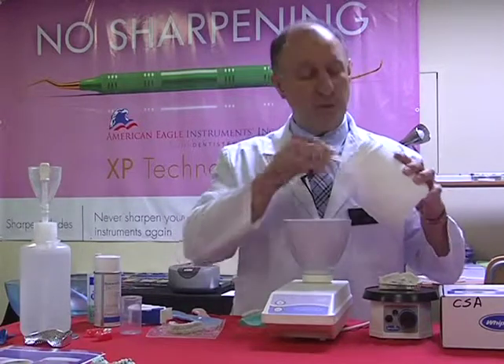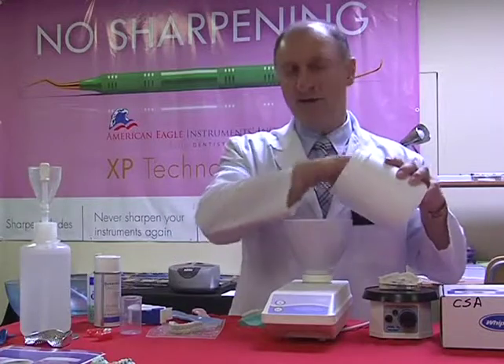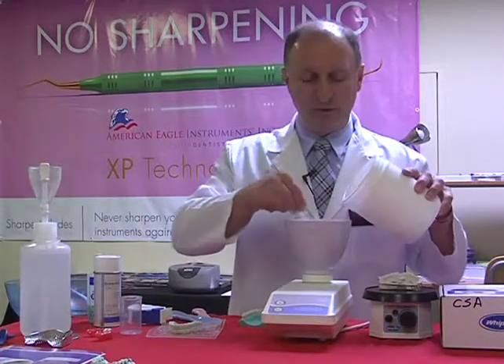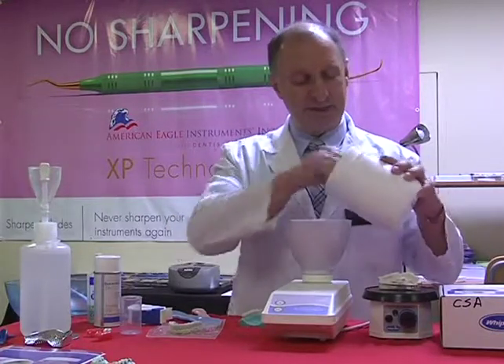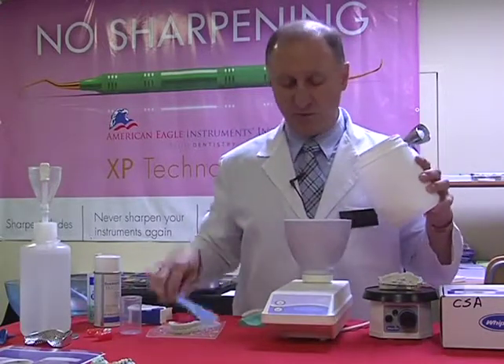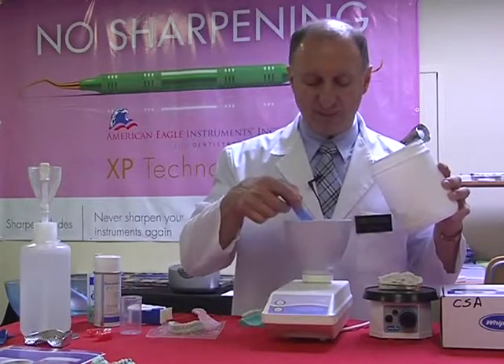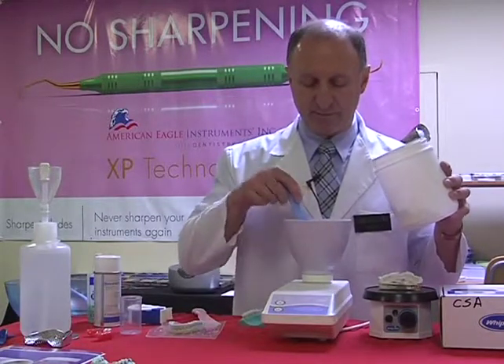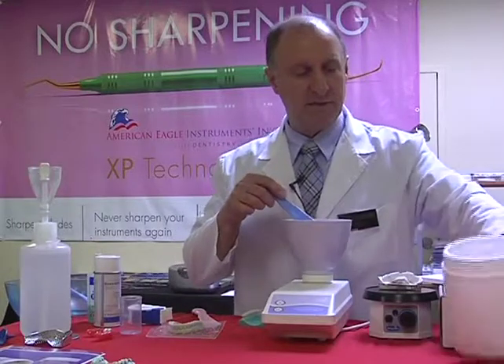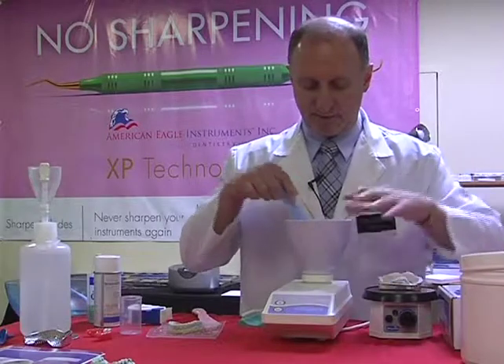It's going to reach a point where it saturates. That means the water will absorb the powder that I'm pouring in. The way that we know we've got the best working ability is that on the surface of the stone we would have a small dry area, and it would look almost like cracking. So let's combine these two together and show you what I'm talking about.